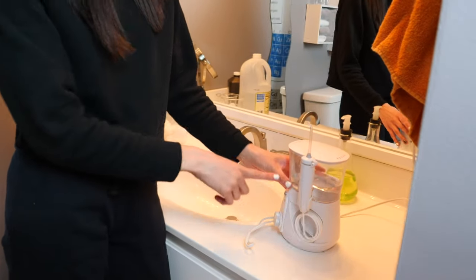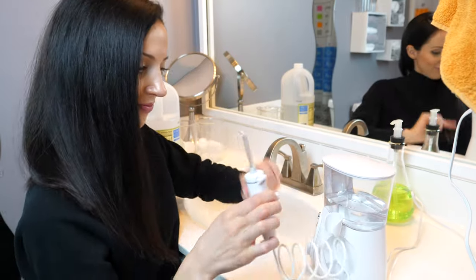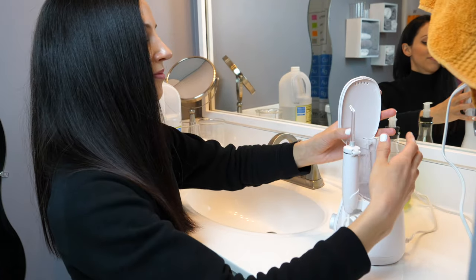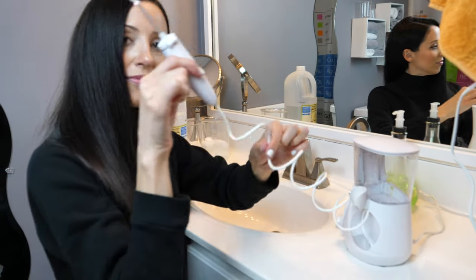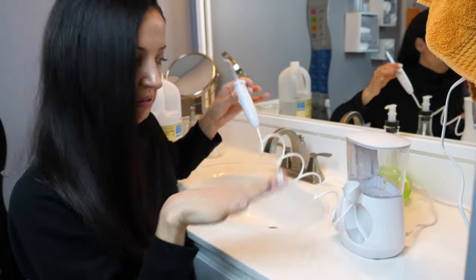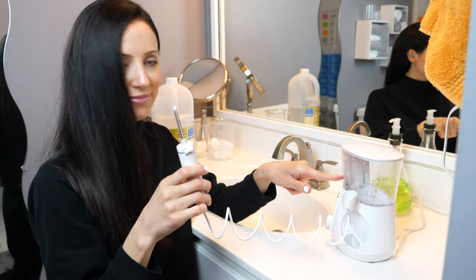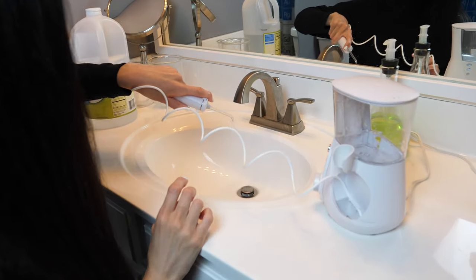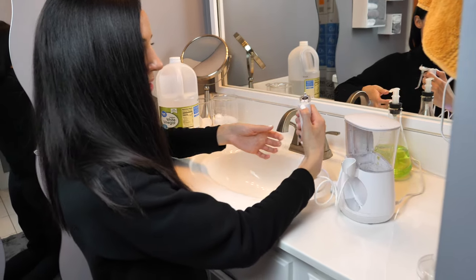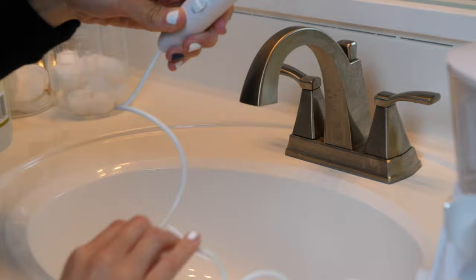So daily, what I do after each use is I will not just turn off the unit and store it with the water still in it. Step one is to pour out the water from the basin. I go even further because I don't want the water sitting in the lines either. Bacteria can grow and multiply quickly in dark, wet places. So after I pour the water out from the basin, I will turn the unit back on, plug it back in, and run the lines out dry. Then I also open up the handle part where the tip is and pour out the water to make sure whatever was sitting in there gets out as well.